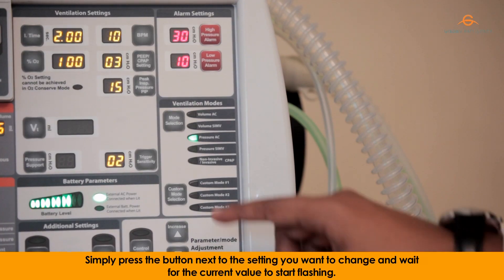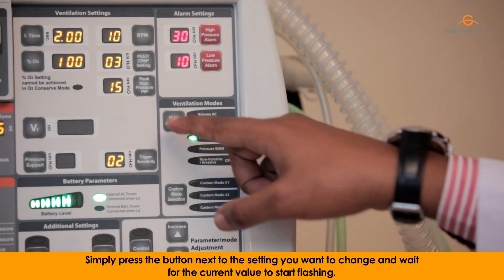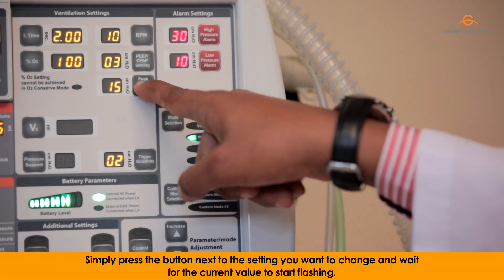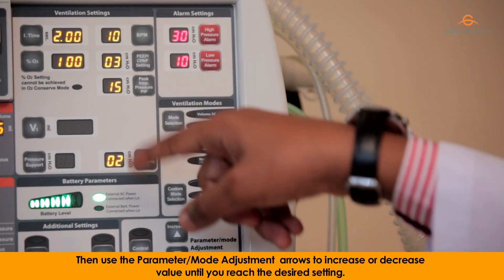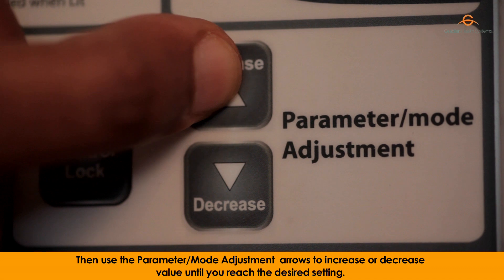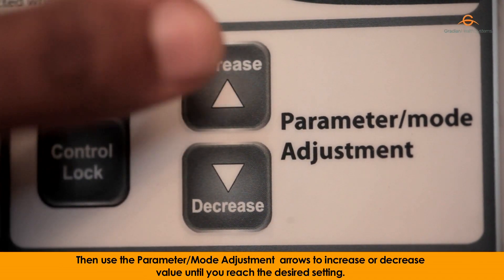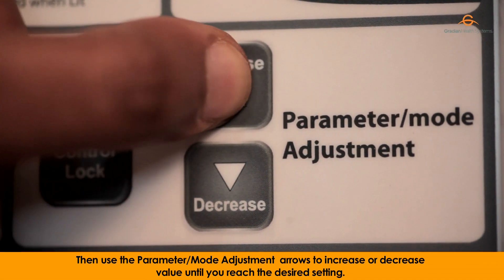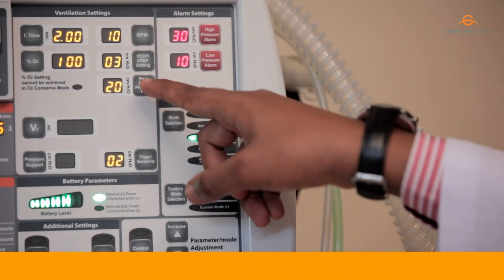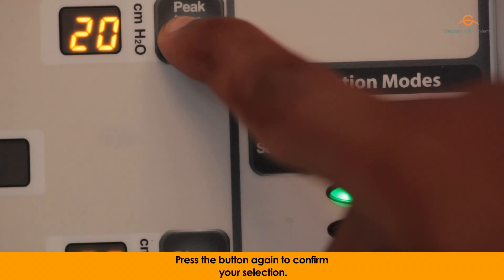Simply press the button next to the setting you want to change and wait for the current value to start flashing. Then use the parameter/mode adjustment arrows to increase or decrease the value until you reach the desired setting. Press the button again to confirm your selection.